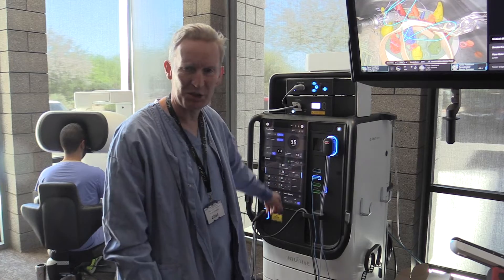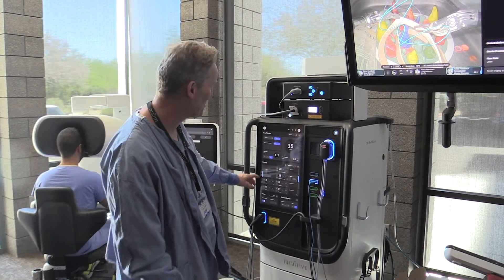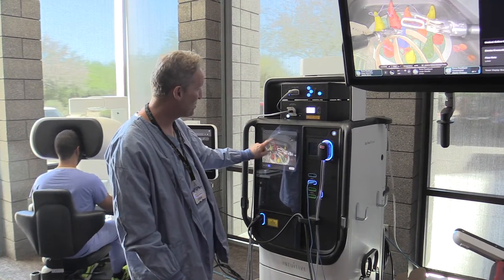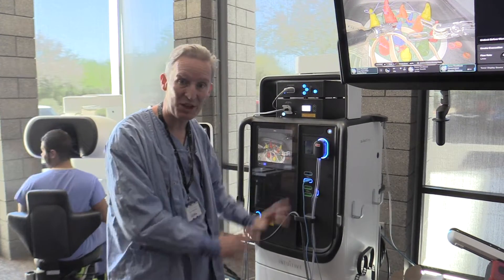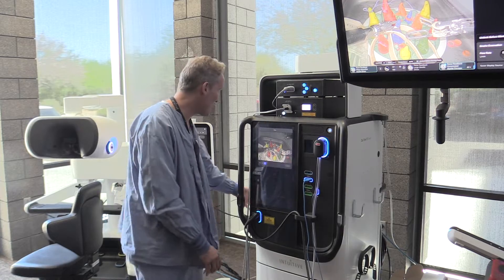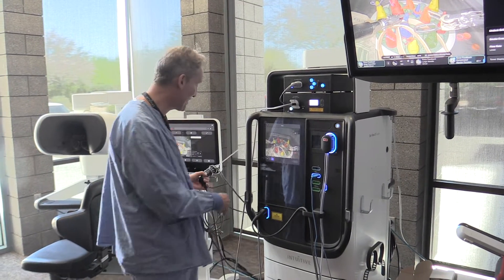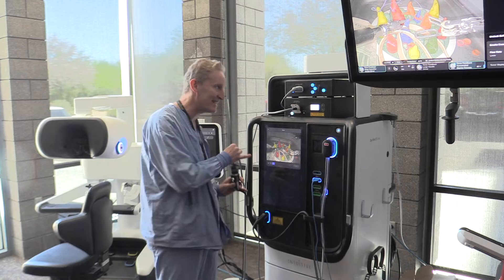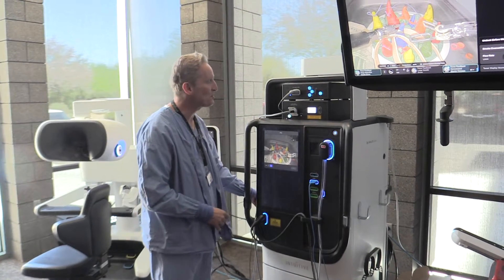You've got proper wattage rather than strange little numbers, which I never really liked before. But then if you want to telestrate, you can come here and do telestration on the screen because it's out of the operative field. A much smaller camera comes as standard — a little 5mm camera so you can actually get into the chest a bit easier, which is pretty cool.